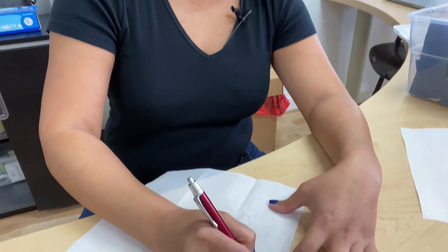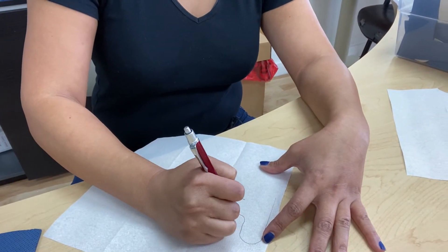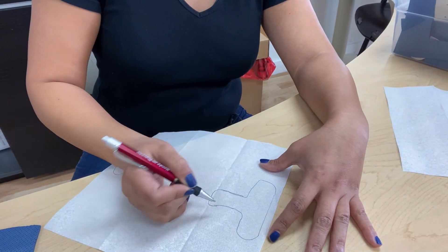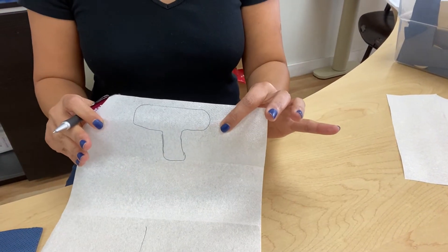I know I've gone through trigger finger splints a lot, but it's always really great questions. And when it comes to trigger finger splints, you know that I go with a T pattern. So I'm going to draw my T. Not draw it like shit. Let me draw it out like a T. So normally I'll go like this — obviously this is kind of big, but it's a T pattern.